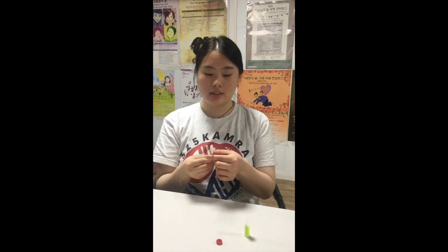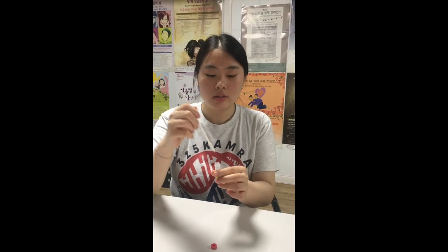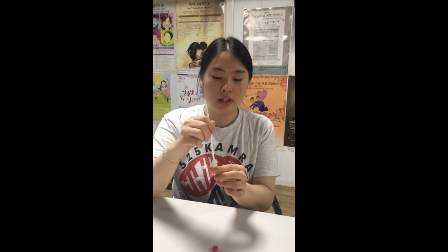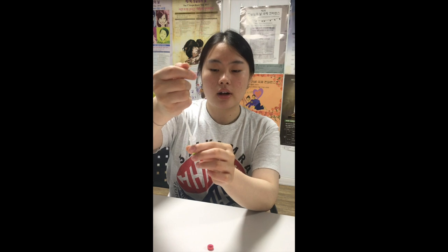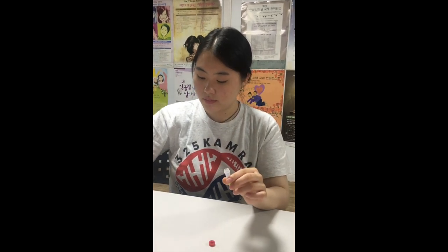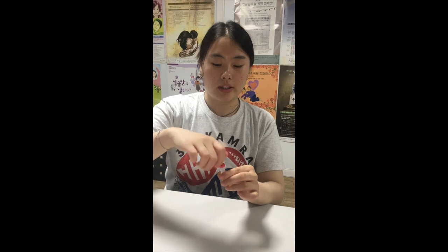After you scrape for at least 30 seconds, hold it carefully, place the cotton swab inside the container, and press on the top to release the cotton swab on its own. After you're done with that, you can cap the lid on again.